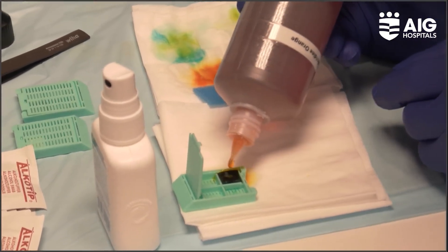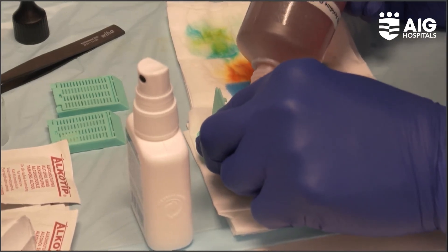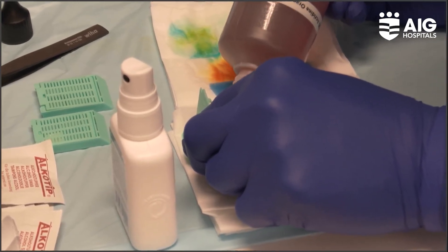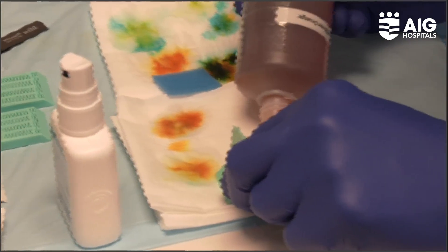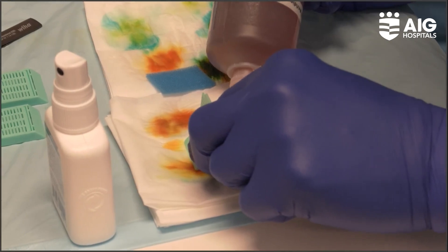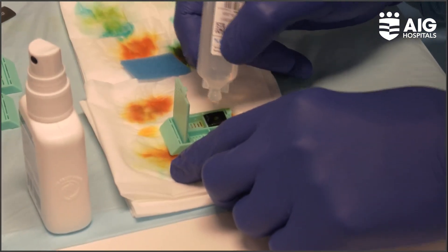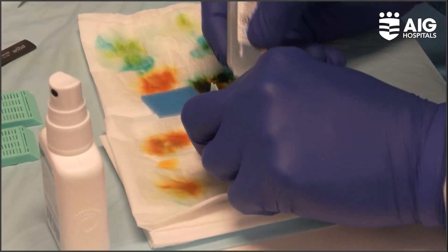Subsequently, if we want to access and then do a regular histopathology, it becomes quite easy in this case. The staining is also very quick — almost like the rapid H&E stains. So we are going to get the images just like we do the rapid H&E stains.